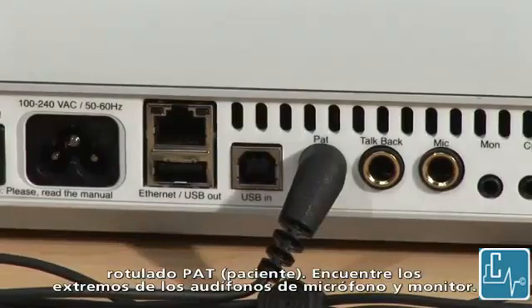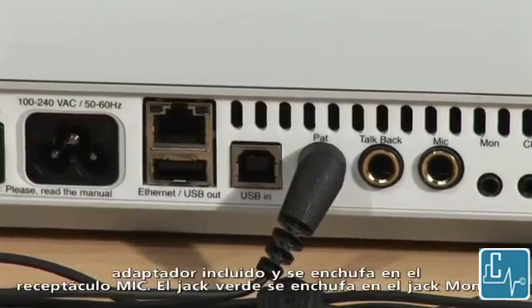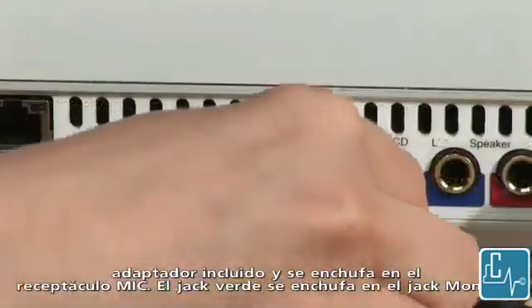Locate the ends of the mic monitor headset. There is a small picture imprinted in the plastic. The pink jack uses the included adapter and plugs into the mic outlet. The green jack plugs into the monitor jack.